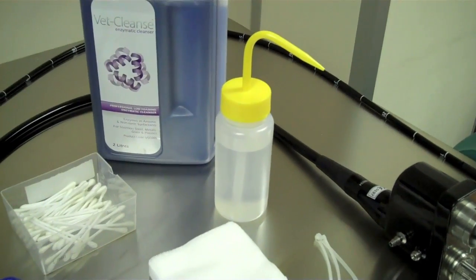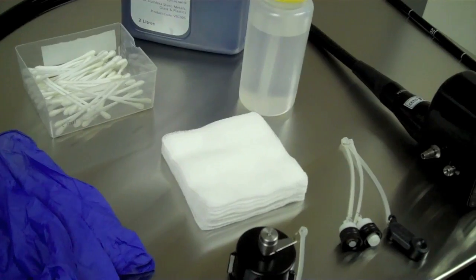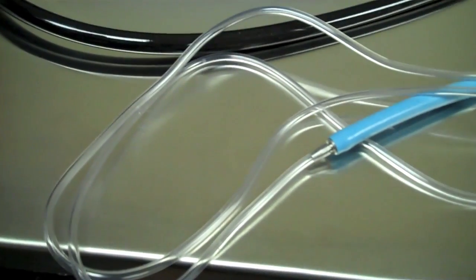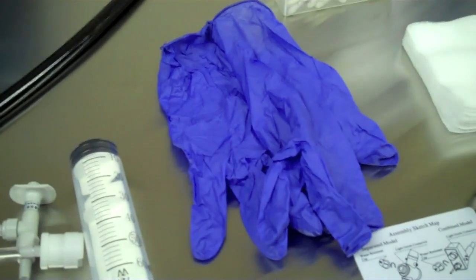A 70% alcohol solution, gauze swabs, your cleaning channel tube, a 60cc syringe, and gloves.